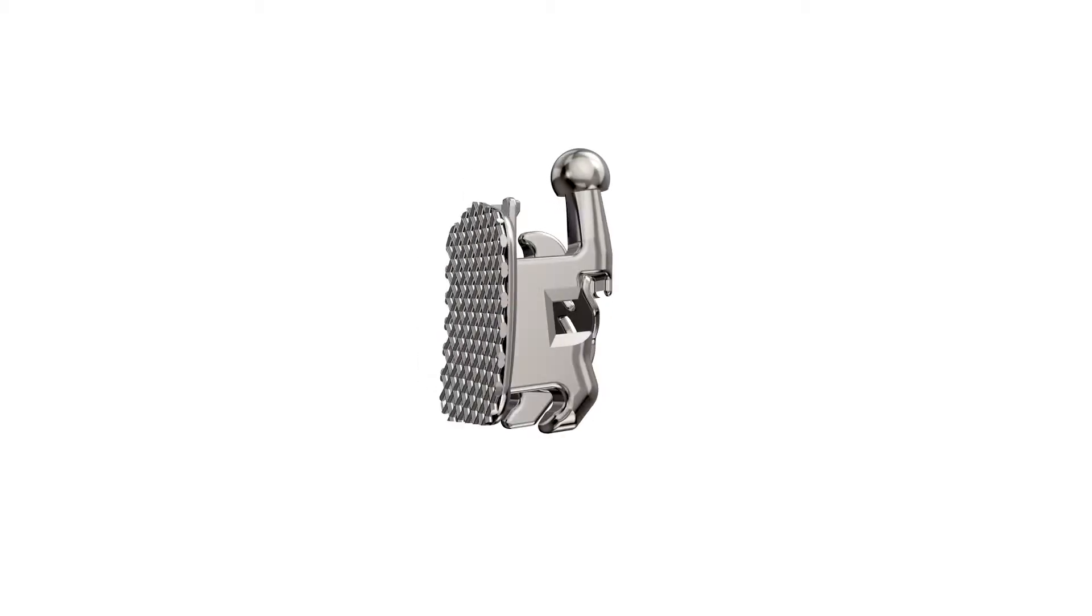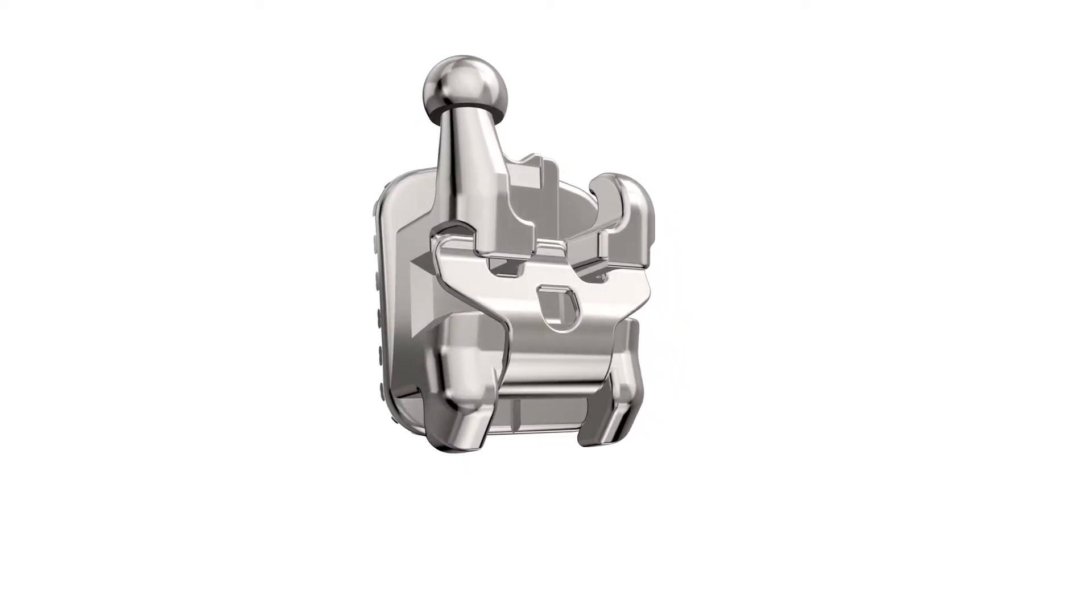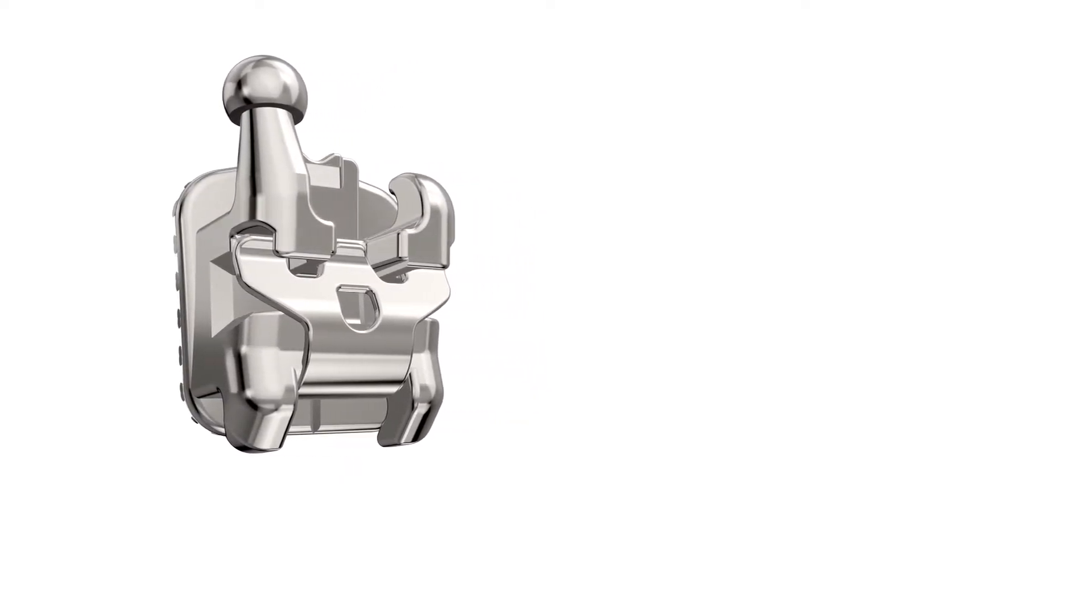Empower's smooth, rounded design eliminates sharp edges and has a low profile, which results in a smoother surface against your cheeks and lips.